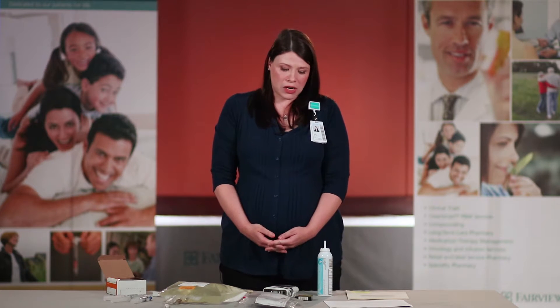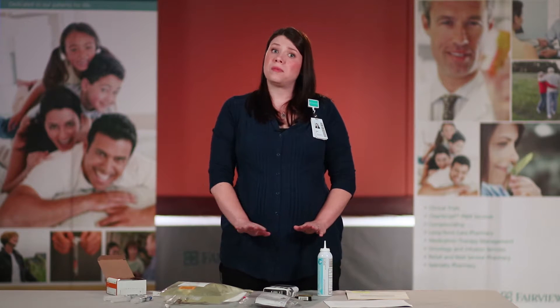You want to make sure that your countertops have a clean surface. If there is any debris on the countertops, you want to remove it with a washcloth and soap.